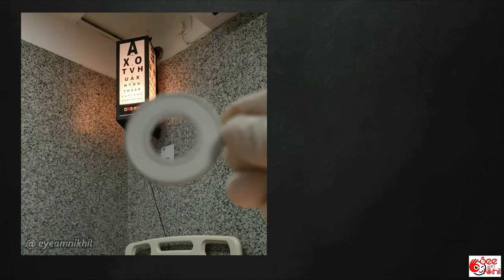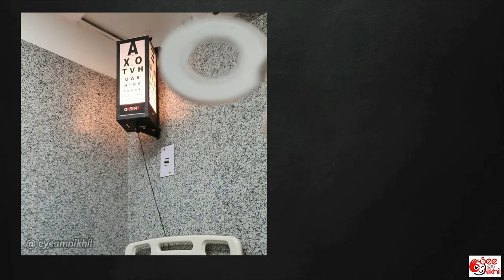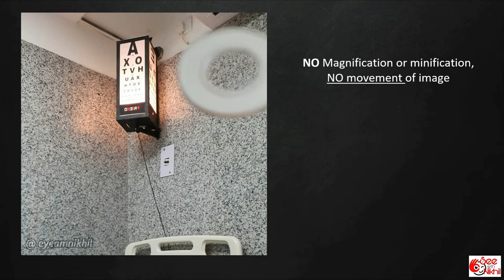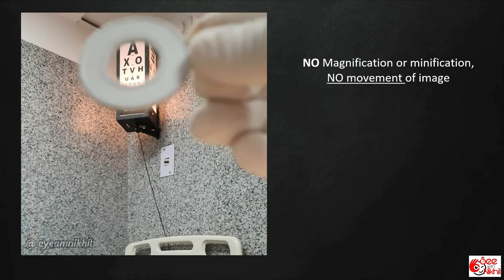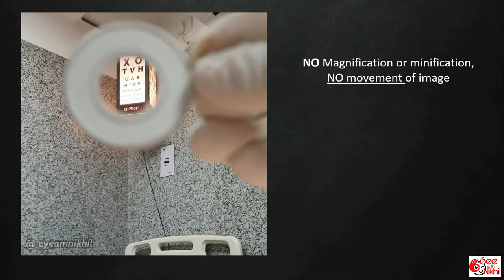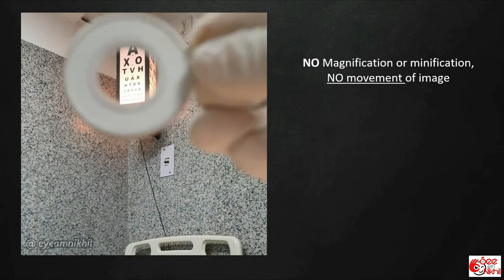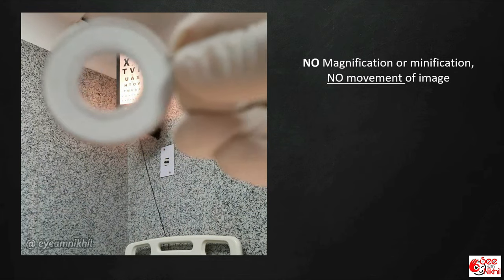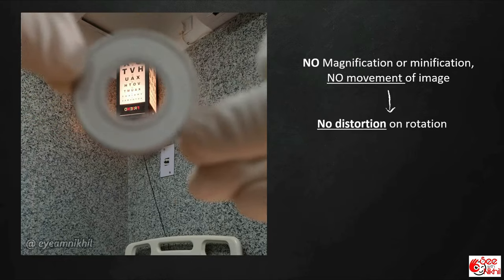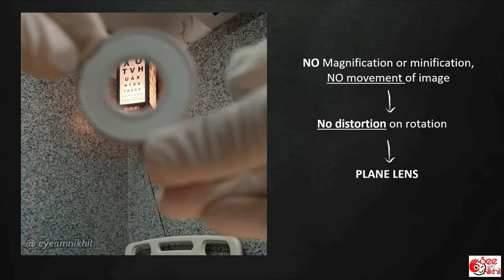For example, look at this lens: there is no magnification, no minification, and no movement of image. There is also no distortion on rotation. This is a plain lens.